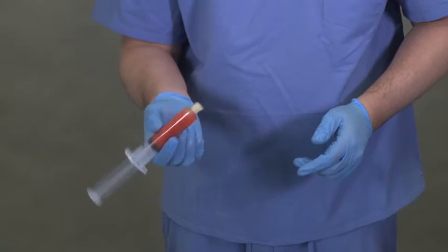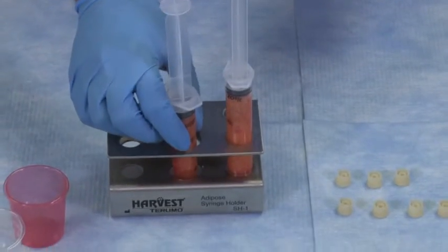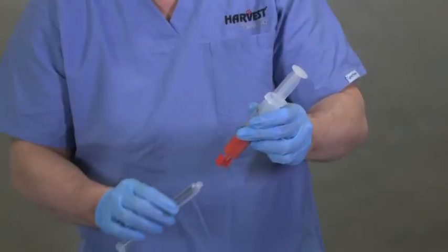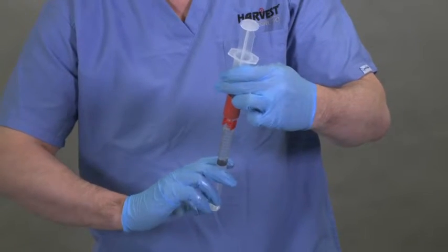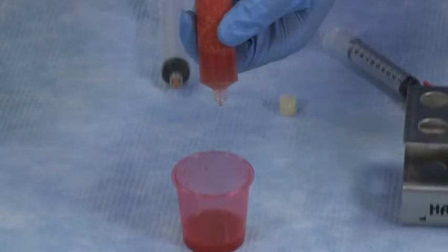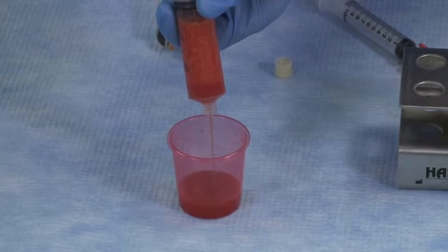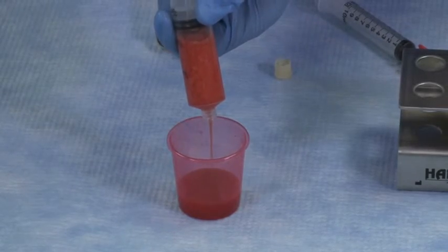With the tip cap facing down, place the syringe vertically into a decant rack and allow the wash mixture to settle for at least one minute. While the first sample is settling, complete the wash steps for the second collection syringe. Once each sample has settled, expel the separated wash solution out of each wash syringe into disposable cups. Be careful not to expel any of the adipose tissue. The samples are now ready for transfer to the Adiprep disposable for processing.